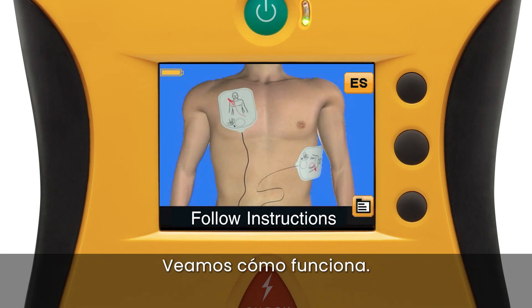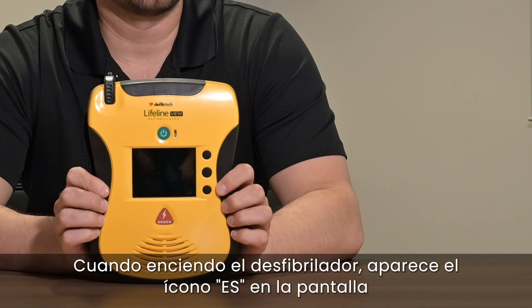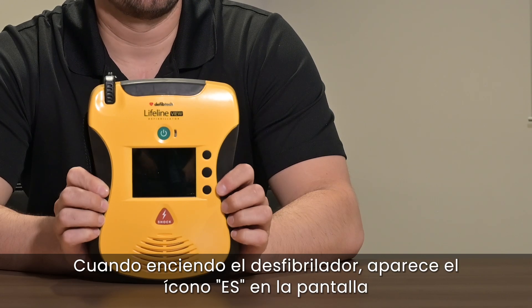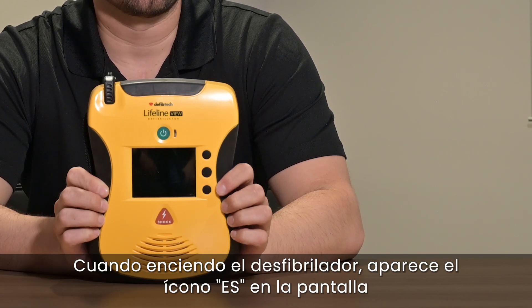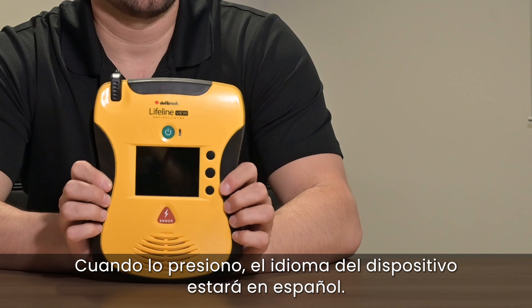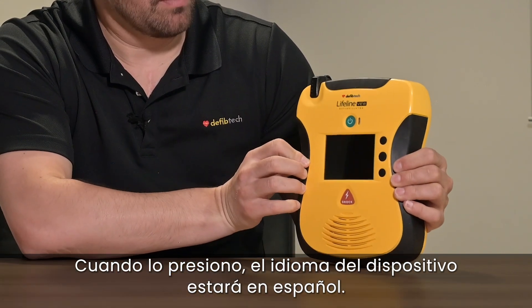Let's see how it works. When I turn the AED on, the E.S. icon appears on the screen. When I press it, the unit's language will be in Spanish.